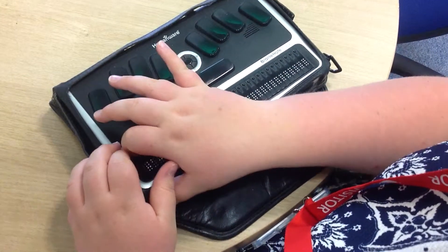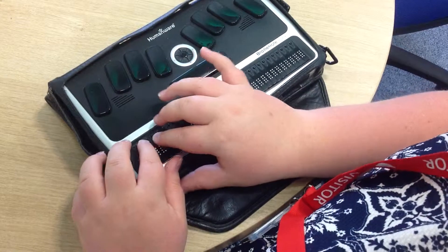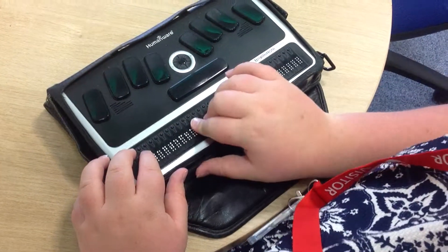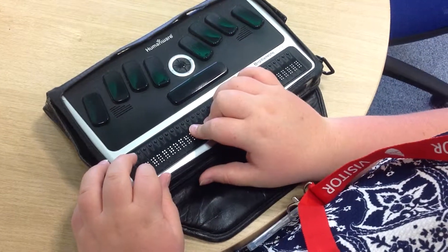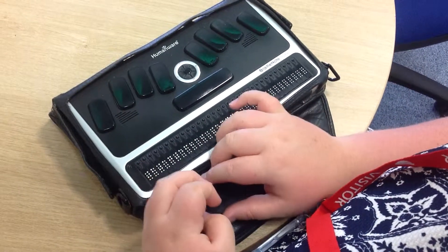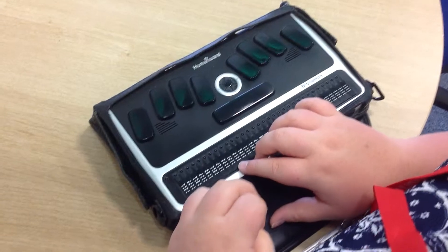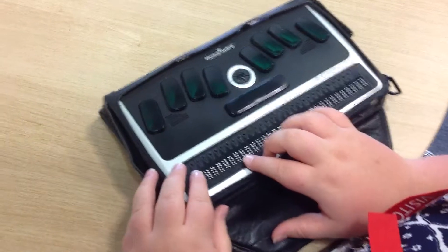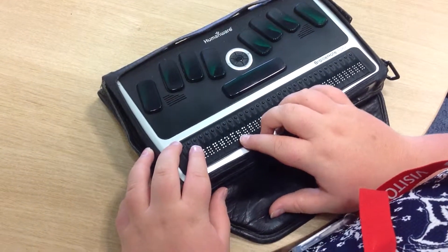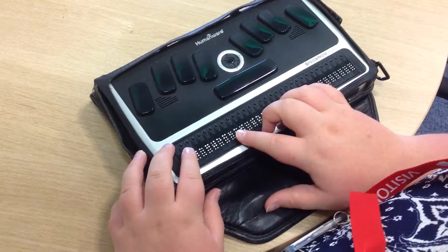They feel like little hard dots with slight little lines — like little stalks at the bottom of them. And they are cursors. So like you've got a mouse and you would perhaps click on an icon or click on a highlighted little bit of text. These cursors basically highlight letters and blanks and different parts of the documents you might be navigating around.